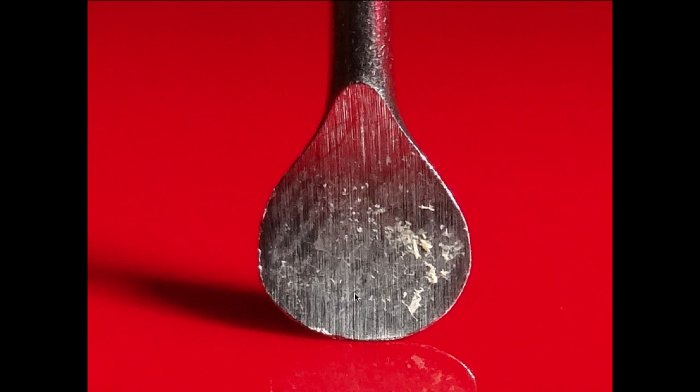When your instruments get to the point where they're considerably dinged, like this one is, you may need to get either a coarser stone or there are mechanical sharpening instruments or honing devices that have diamond surfaces that you can use to take this edge and recreate it.